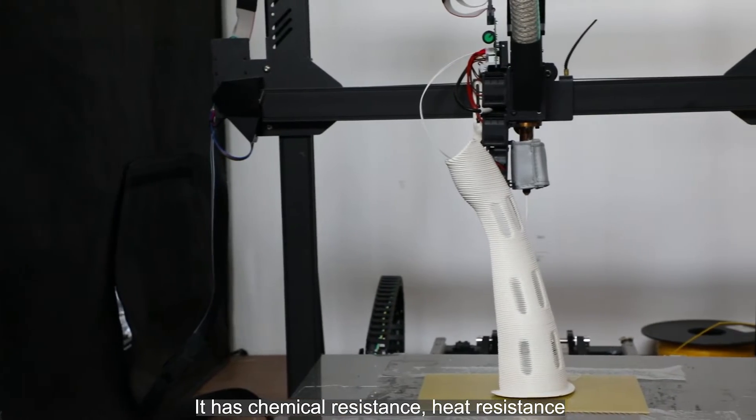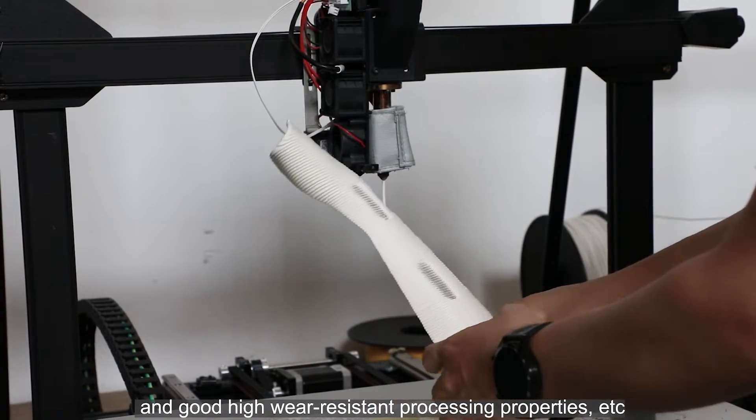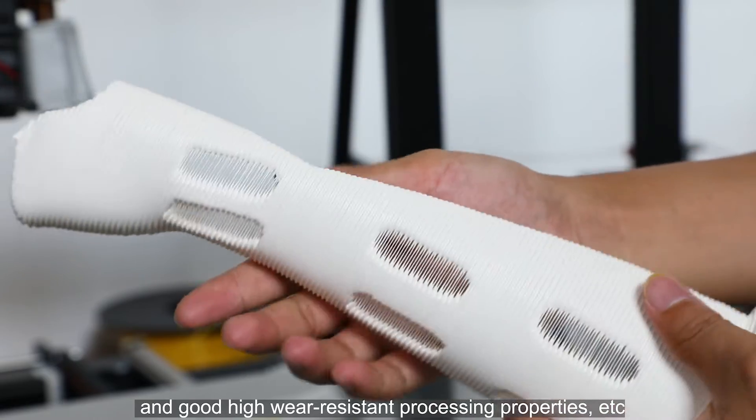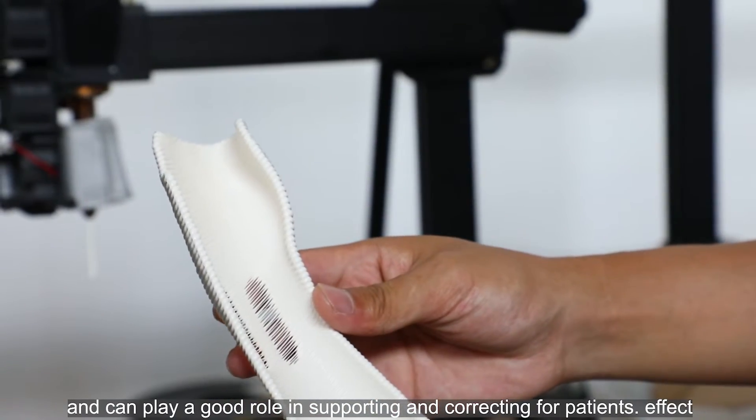It has chemical resistance, heat resistance, electrical insulation, high-strength mechanical properties, and good wear-resistant processing properties. With good impact resistance and toughness, it can play an effective role in supporting and correcting for patients.